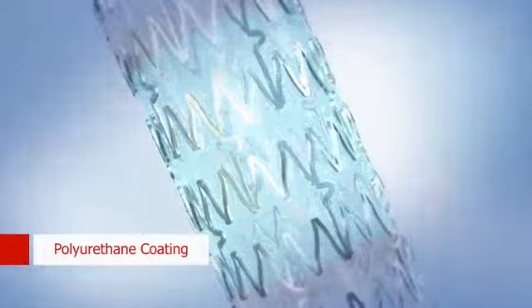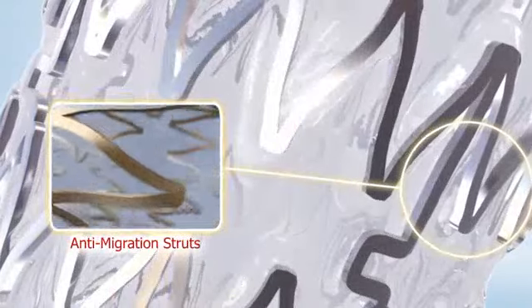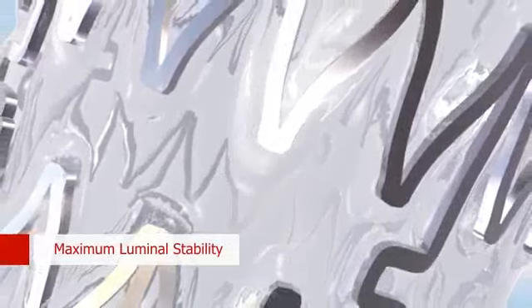The stent is fully covered with a polyurethane coating and has unique anti-migration struts that run throughout, providing maximum luminal stability.